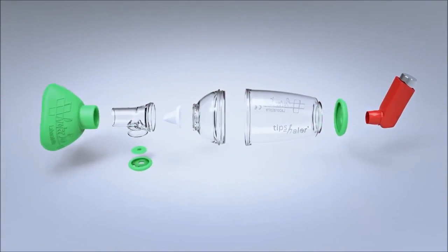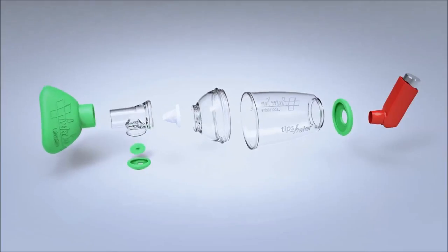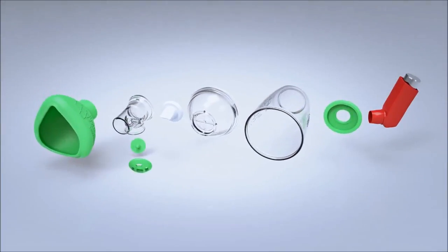Tipshaler was designed especially to optimize lung deposition of medicine and minimize possible side effects.